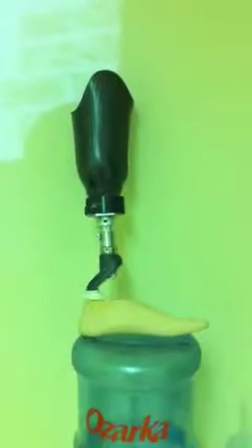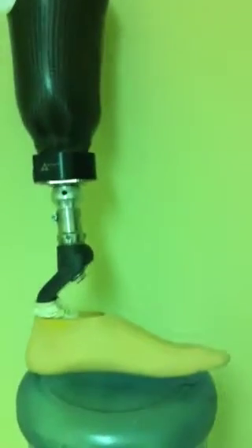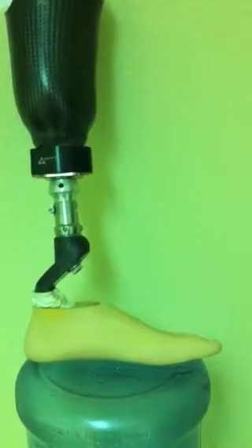Alright, I will explain this leg to you real quick. This is another below-knee (BK) patient with a multi-axial foot. This is a heavy duty foot. He was a 6 foot 7 inch patient and he weighed about 280 pounds.